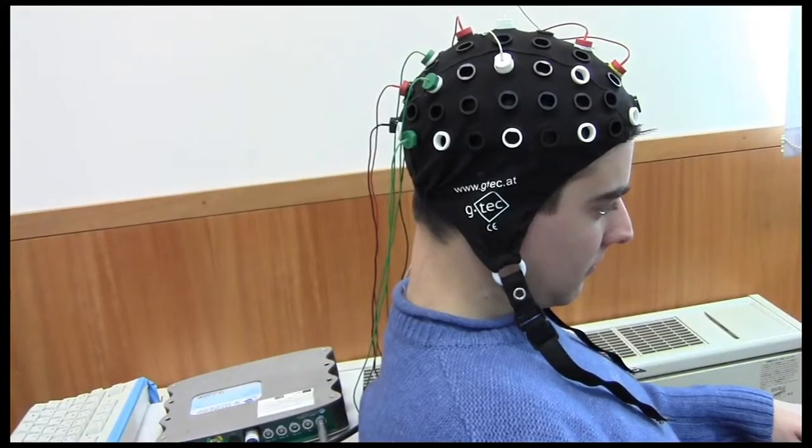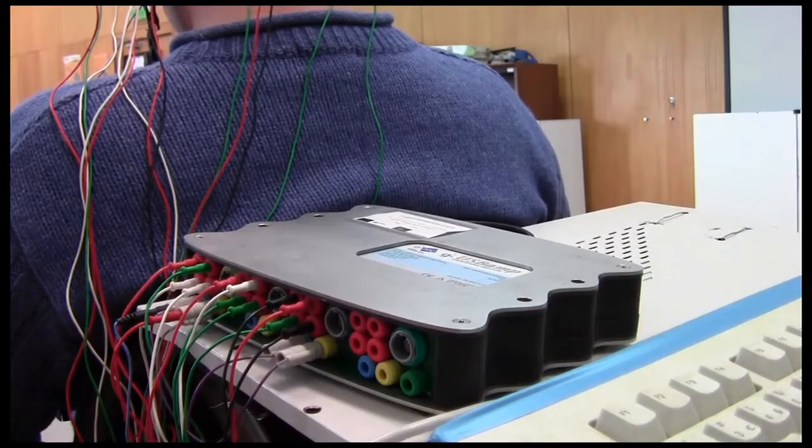It can be brain-actuated by BCI and external devices can be linked, allowing networked robotic research.